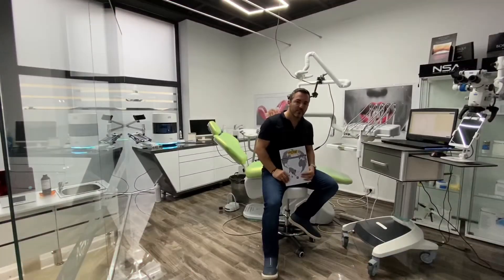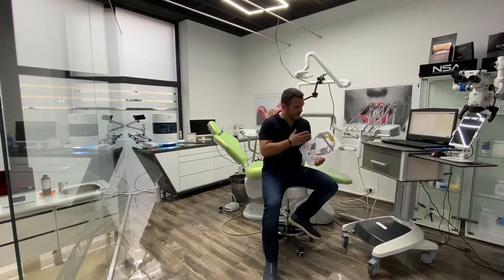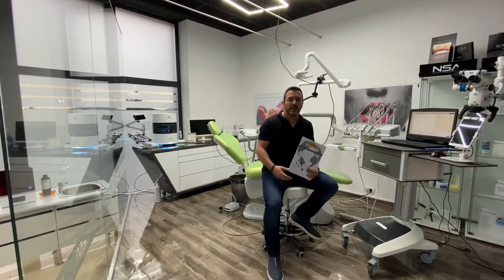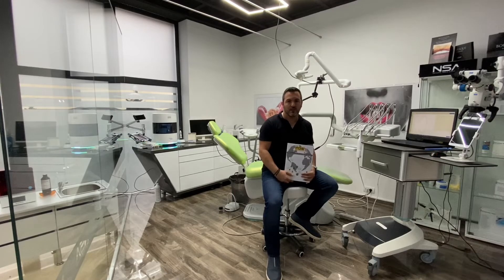So what is full digital workflow? As you can see, it's an international standard for digital dentistry and it's made of a multitude of equipment, choices and workflows all put together to make predictable dentistry.